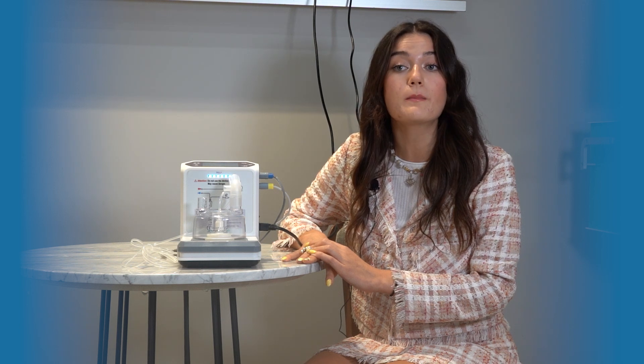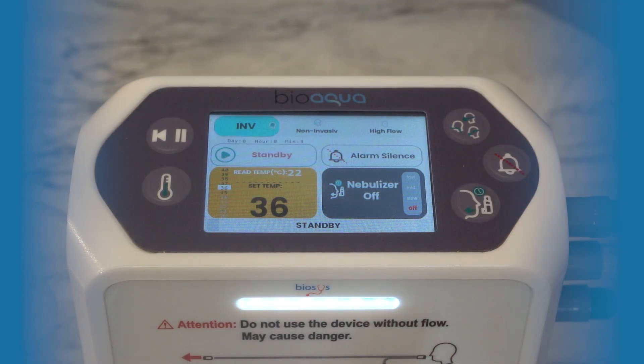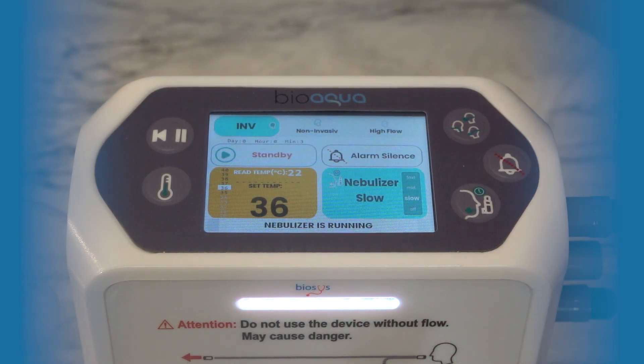The device is equipped with a mesh technology nebulizer. Using mesh technology, the medication is converted into aerosols between 1 and 5 microns, making it breathable and allowing the medication to reach the lower respiratory tract directly. To activate the nebulizer mode and adjust its speed, you simply press the corresponding button or the nebulizer icon on the screen.